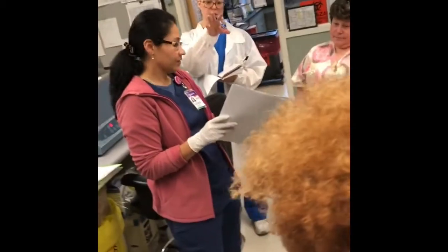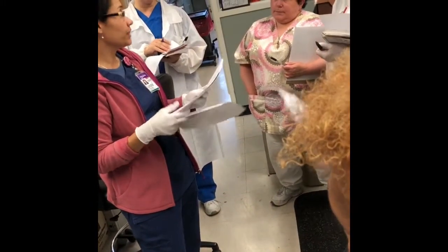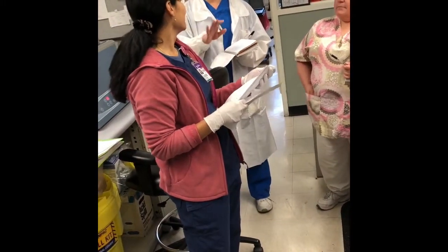Instead of doing the calculation for one side and the calculation for another, we average those two. Right, that's for the QC. For the QC. The others don't do that.